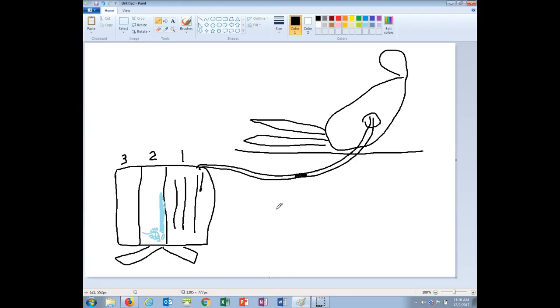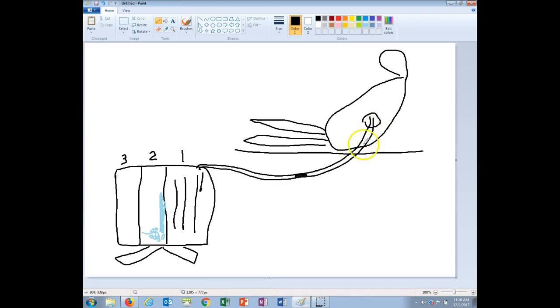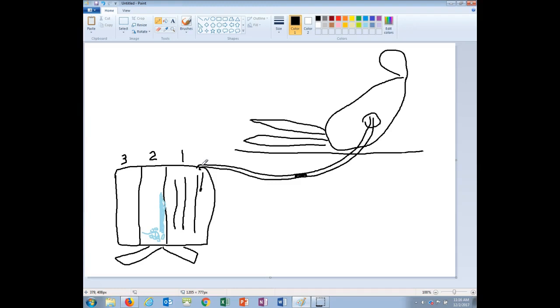Now typically you're not to clamp a tubing, clamping is bad because that can cause a tension pneumothorax, but if you need to figure out where there is the leak you can clamp for a few seconds. So first you want to make sure that your dressing is secure. If that's fine, you kind of move along the way where the connection is here, make sure the tape is secure. If you get to the point here and near the chamber itself is still bubbling, it might be with the unit itself and the unit needs to be swapped out.